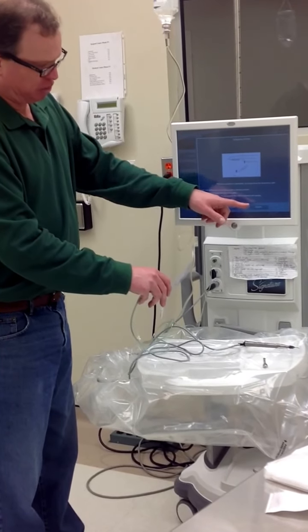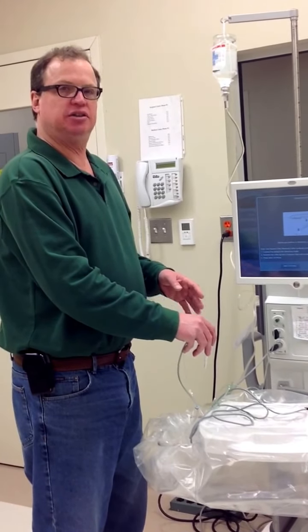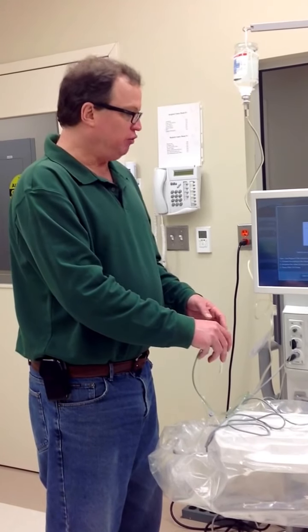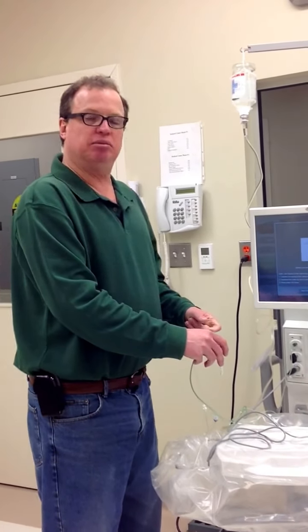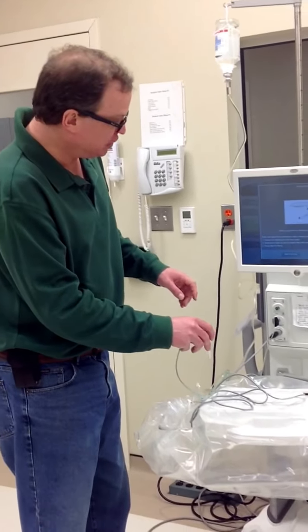There's a bypass button over here. On the initial setup of the vitrectomy, you never hit bypass. You always hit Start Vit Prime. The reason for that is that if you don't do the priming sequence, you don't test the vitrectomy probe, and you may have a problem if there's some type of issue with the cutter blade not working, and that could cause a retinal detachment if you put the vitrectomy probe into the eye, aspirate, and then have no cutting. So that's why you always hit Start Vit Prime.